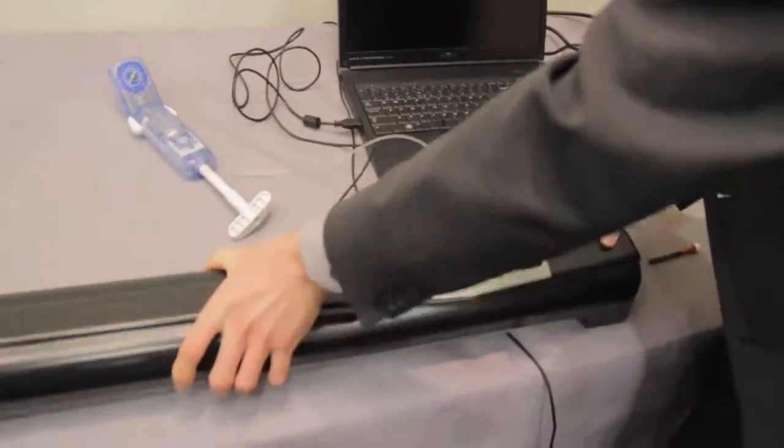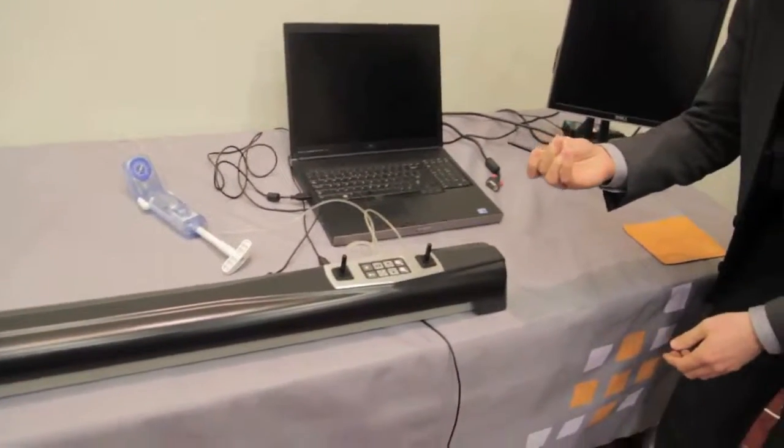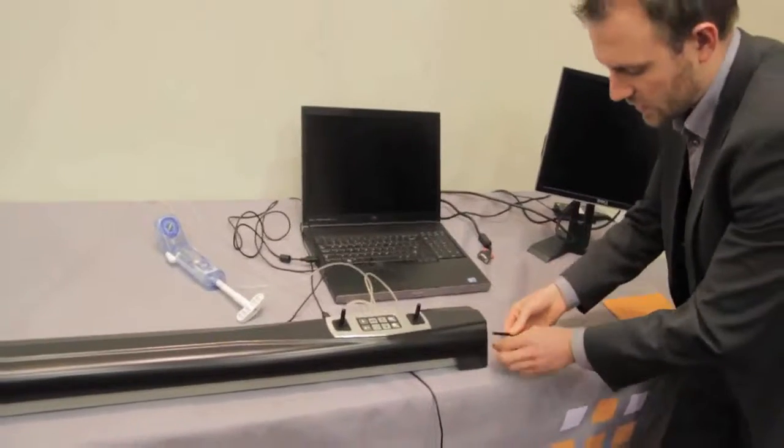We turn the simulator back over. We have the introducer, which will attach inside here.